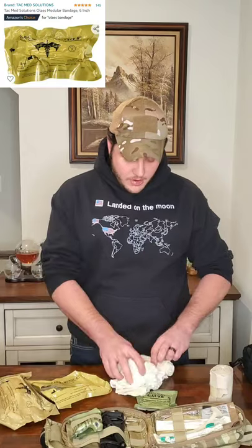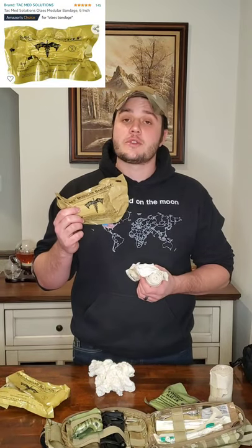That's pressure bandages. Now let me talk more about the OLAES bandage from Tactical Medical Solutions. They've really thought everything through with this design. It comes in a four-inch version and a six-inch version, and also a flattened version that fits nicely in a first aid kit. When you unwrap it, you get a regular wound covering, plus gauze stuffed inside a pocket so you have it readily available to pack wounds.